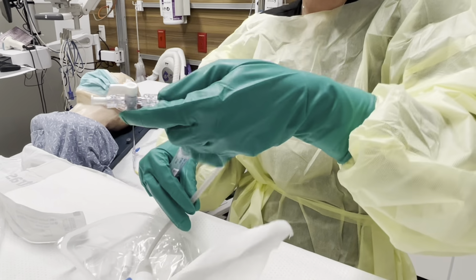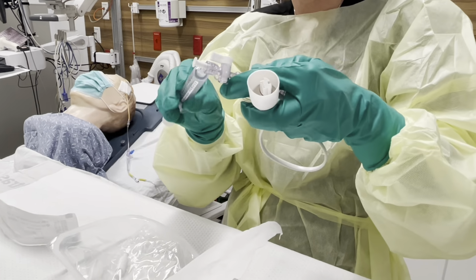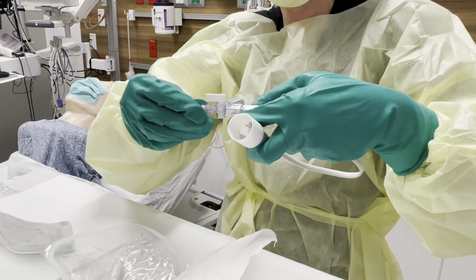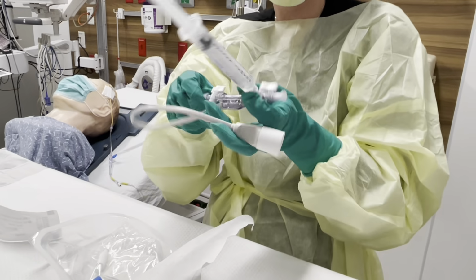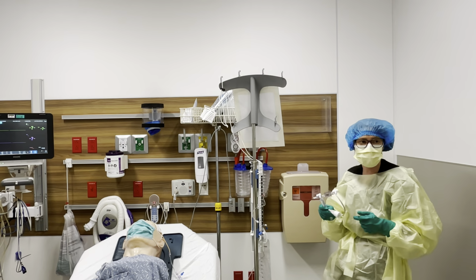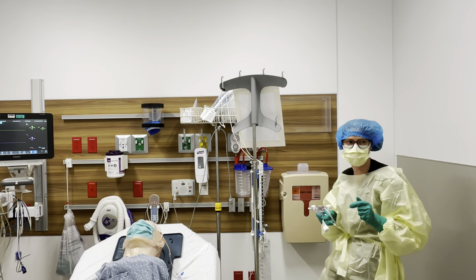So, all right, now what we're gonna do is take this off. We're gonna hook this up, okay? You can change your caps out here if that helps you. This is gonna end up going to the transducer, so you don't actually need a cap here. You're gonna need a cap over here. You're gonna have a friend come on over and, with clean gloves, not sterile gloves, have them remove this cap right over here.